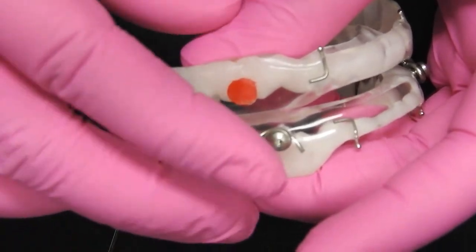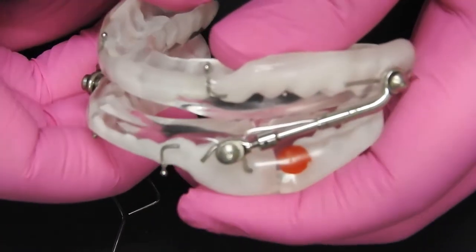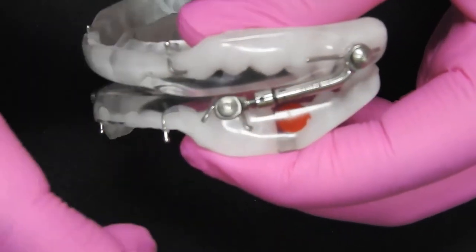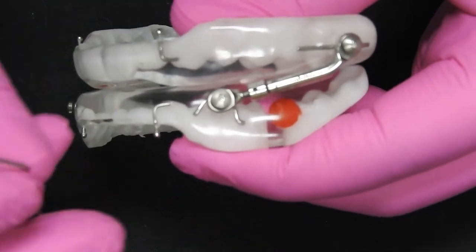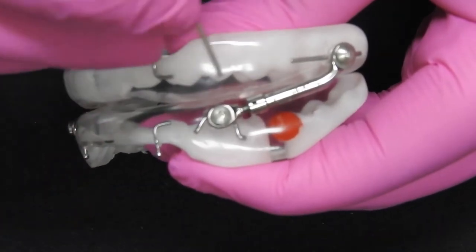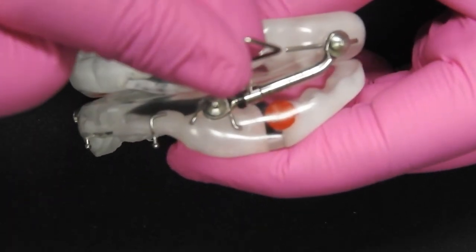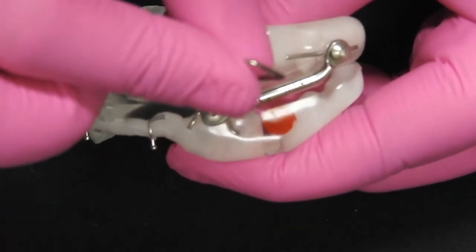Make sure you go to the other side, the left side of your device. Sandwich the device together so it doesn't move on you. Take your key, insert it into the middle keyhole, and turn 90 degrees in the direction of the big red dot.